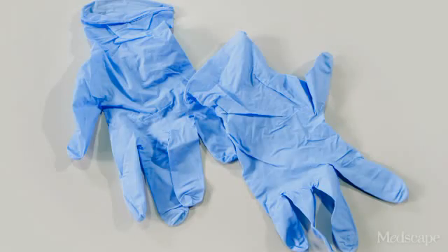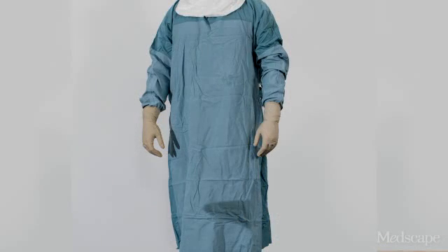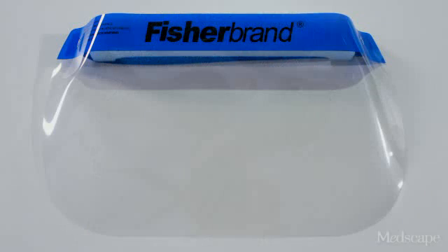This includes nitrile gloves, shoe and leg covers to go to the mid-calf, a gown that is large enough to allow free movement and is fluid-resistant, a surgical hood that covers all of the hair, ears, and neck, outer gloves that have an extended cuff, and a face shield that provides additional protection to the face, including skin and eyes.